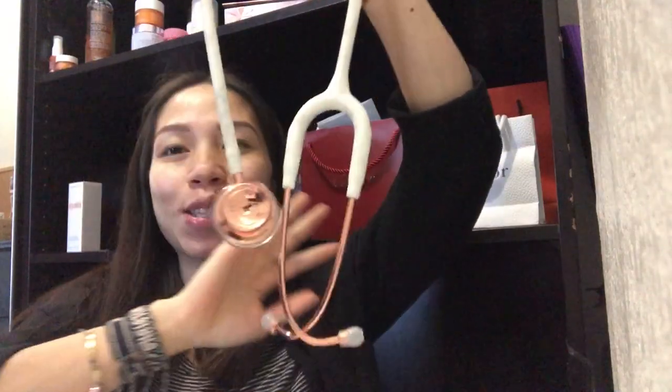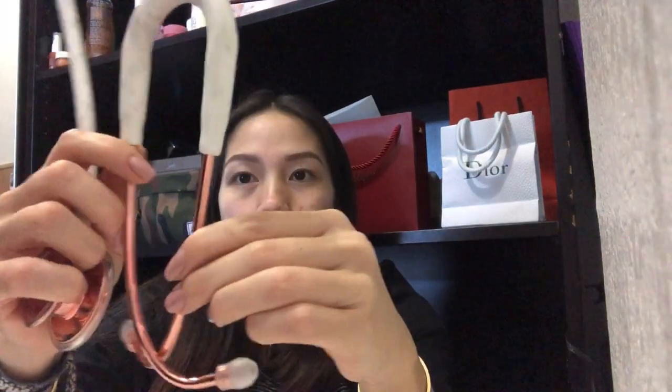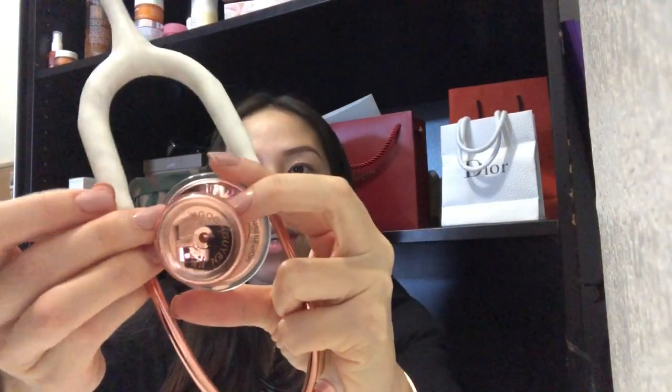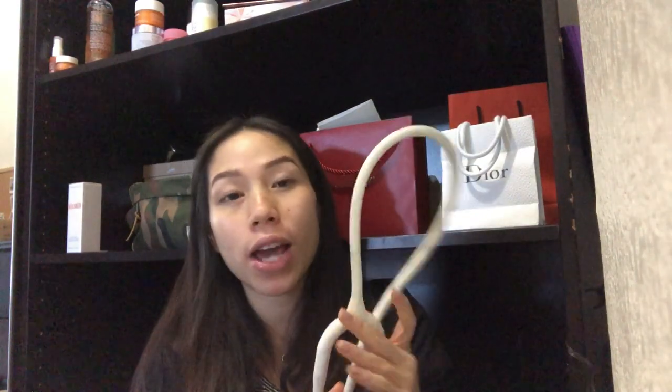So I got the MDF 777. I already opened it — let me show you guys. I got sucked in because of the marble design. The tubing is white with marbling and the hardware parts are rose gold. I would have loved actual gold, but that's okay. They were also offering free engraving, so I got my name engraved on it. They have a whole bunch of different tubing designs too — galaxy, glitter, black glitter, all sorts of stuff.